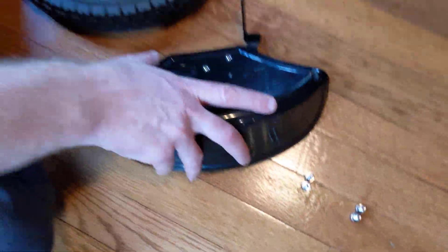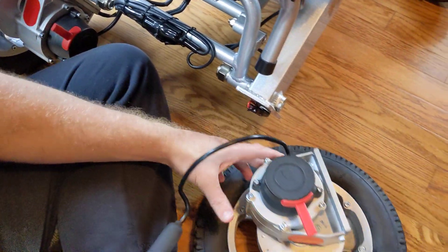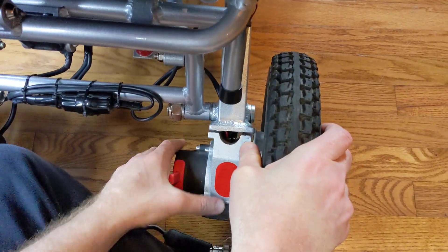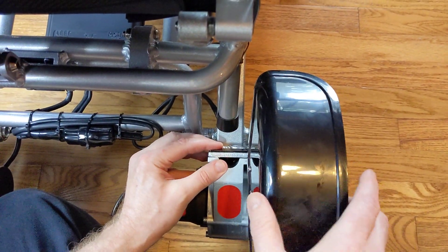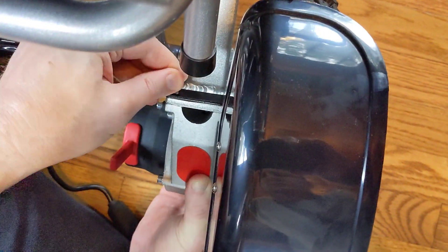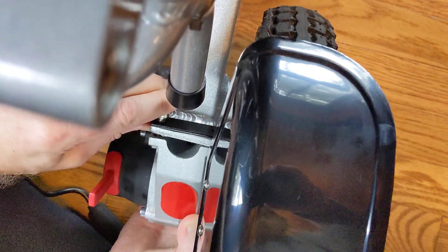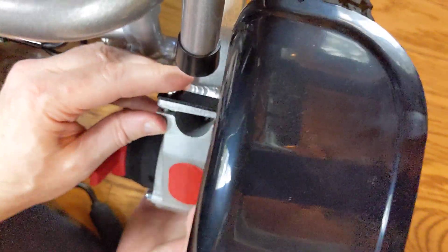Let's take a look at the motor. This will eventually plug right into the CPU unit. I'm going to place the motor where I want it to be, put the fender here, grab one of these screws, and take the path of least resistance first — I just want to thread this through to the best that I can. You can see how that goes through right there, then I can line it up with the motor and get this started.